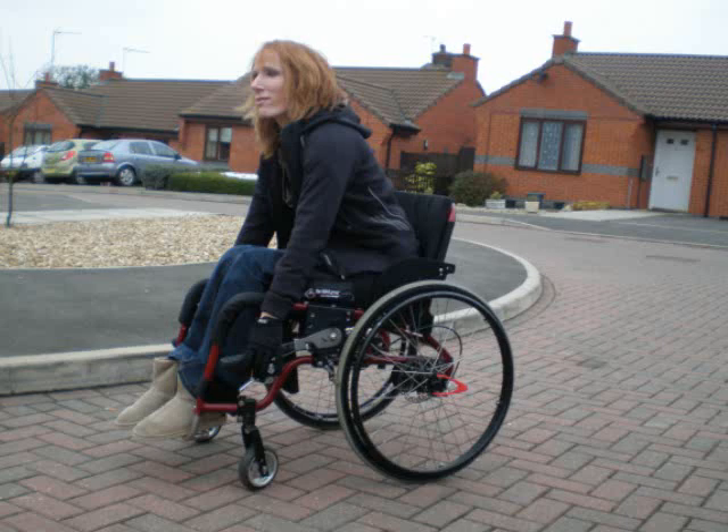In this demonstration, Lisa's hands are not fully grasping the handles, demonstrating clearly just how far forward the user needs to lunge in order to lock down the handles should they do so during a power stroke.